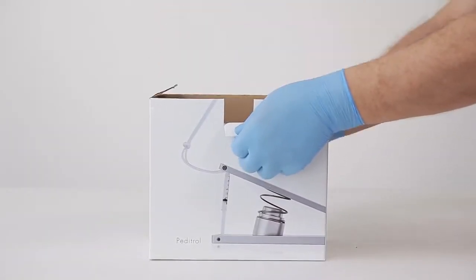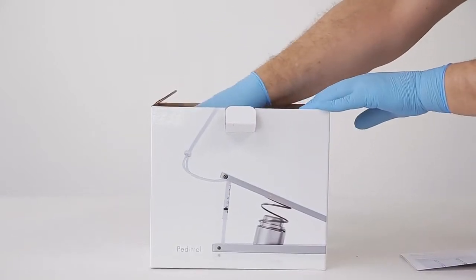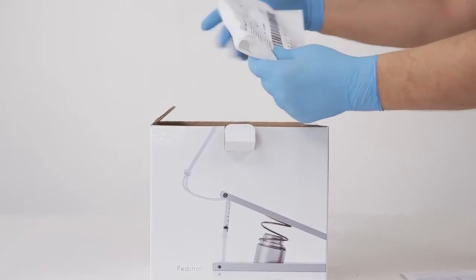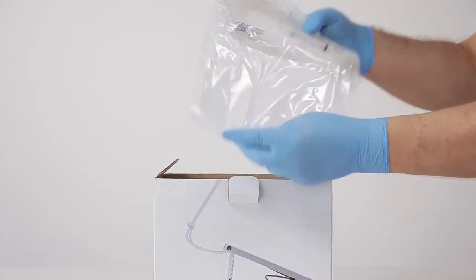Open the box and remove the disposable unit. Check the expiry date and the integrity of the primary packaging.